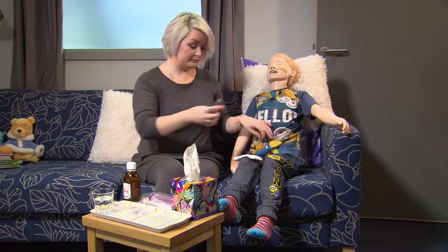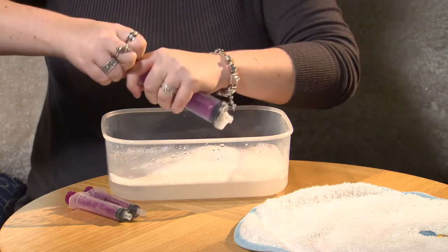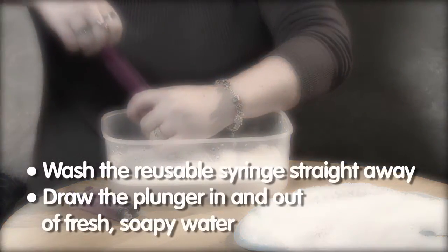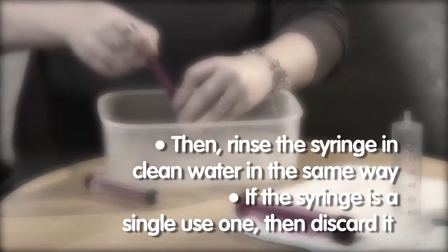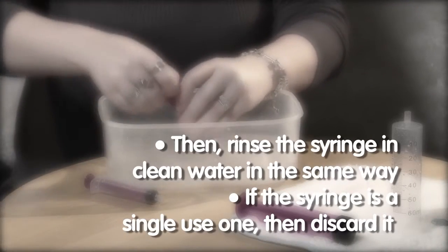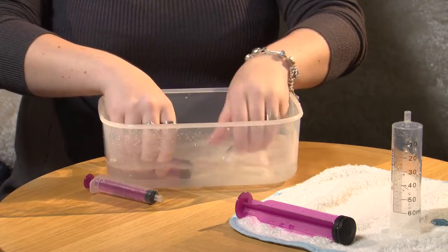If you are using a reusable syringe, once you have given the dose, wash the syringe straight away using fresh soapy water. Draw the plunger in and out in the soapy water several times, then rinse the syringe in clean water in the same way. If you are using a single-use syringe, discard this.